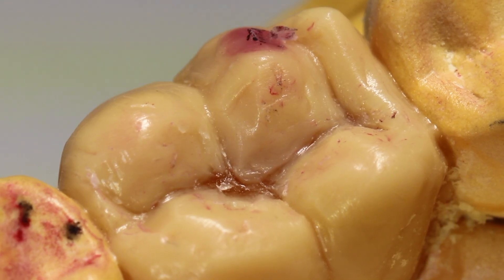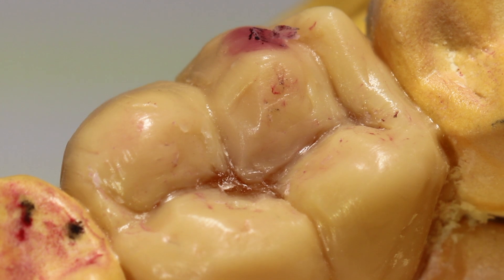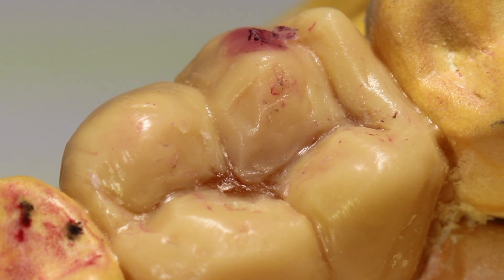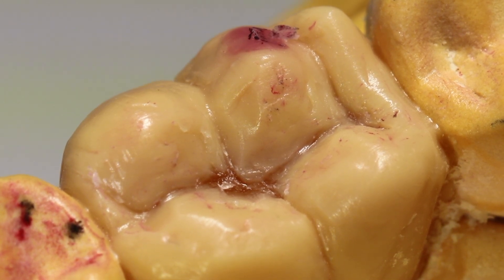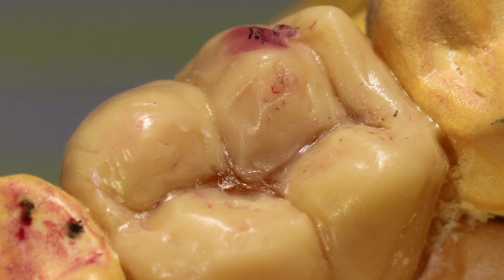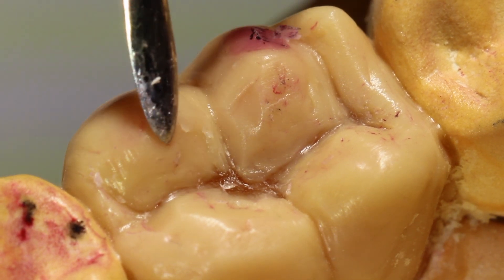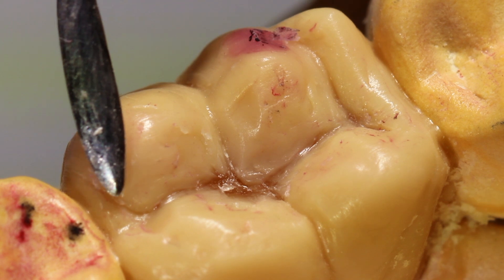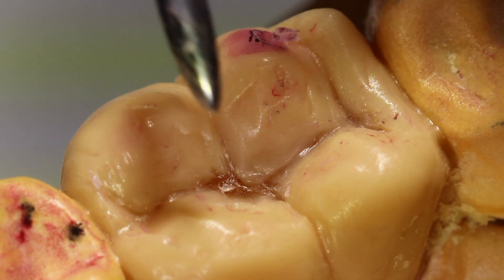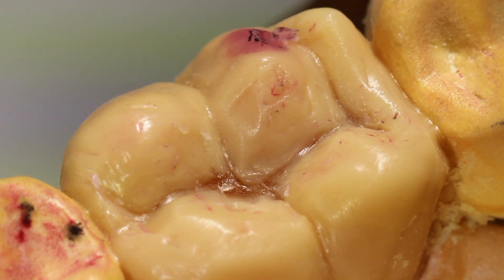This is tooth number 30, a wax-up that I've been working on recently, and I'd like to go over some of the basic techniques of using these instruments. First, I'll demonstrate the half-Hollenbeck instrument. It has a few different motions: one that I call burnishing, and another that's cutting.